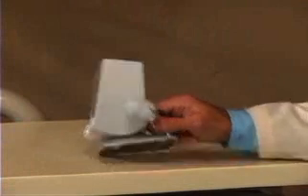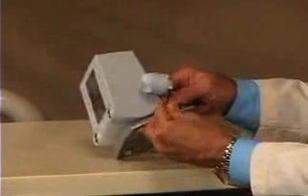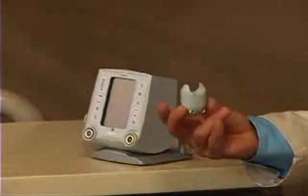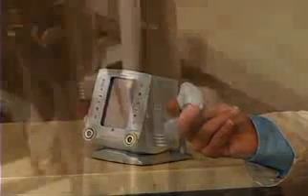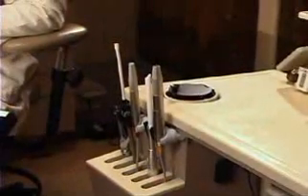The hangers are quite ingenious. They're removable — an Allen wrench will do it — so you can take them off and place them on a handpiece hanger alongside your handpieces and suction devices. After attaching them to the hanger, it's easy to place the System B heat source and extruder in the same arrangement. Take the 12-volt cord, plug it into the back, and we're powered up.